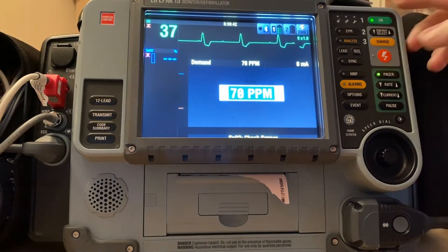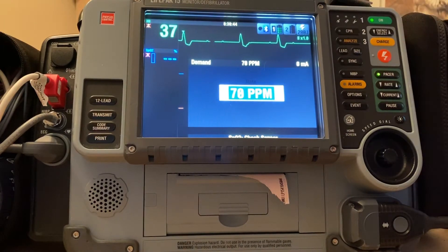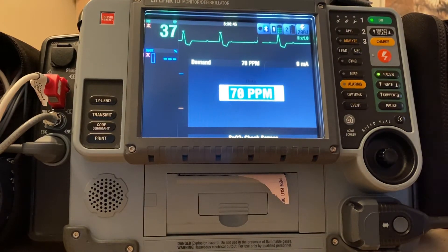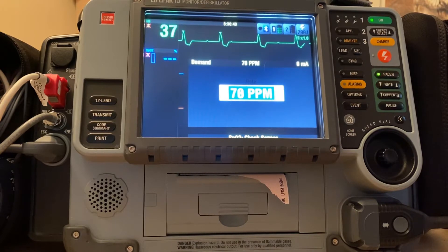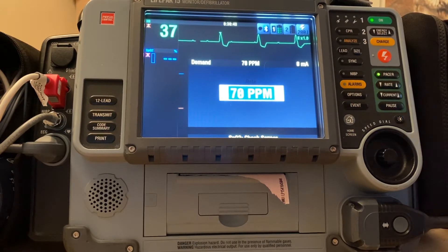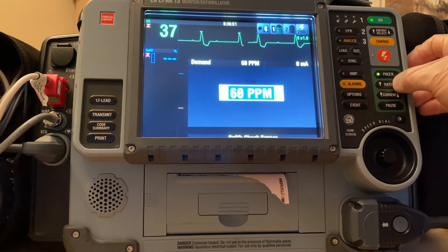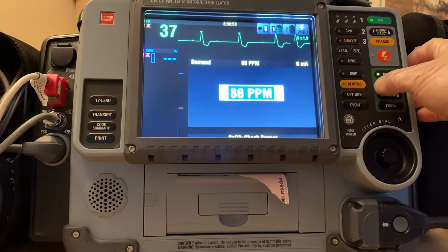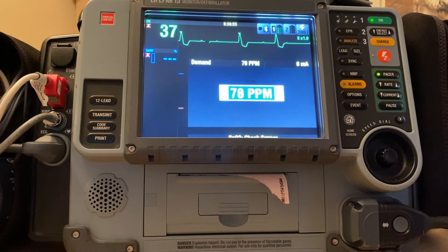So we turn the pacer on. Seventy beats per minute is a pretty standard normal human heart rate, so most people would probably leave it there. You could change the rate certainly if you wish to, but we'll leave it at 70.